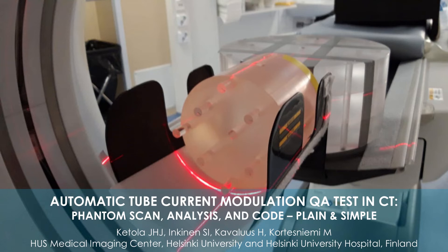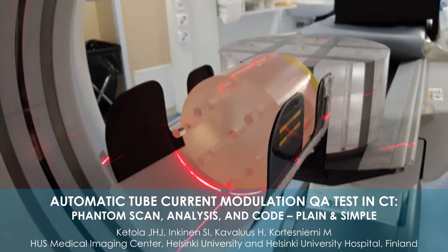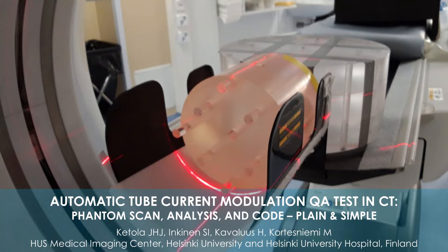Hello, my name is Juosa Ketola and I'm from the Medical Physics and Radiology Department from the Helsinki University Hospital Medical Imaging Center. In this video I will go through how to perform automated tube current modulation quality assurance in a quick and simple way.